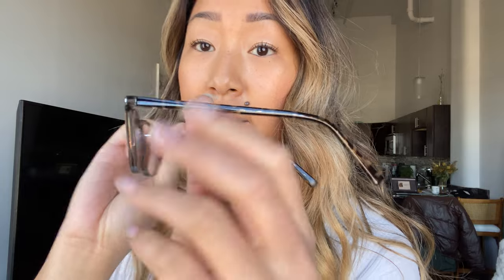Frame number three is the Dumont Rectangle — a translucent frame with beautiful detailing on the arms. It starts from $5.95 with a lens width of 51 millimeters. It does not have spring hinges or nose pads and is available in gray, which is the color you see here, orange, and plaid. It also comes as sunglasses — a great everyday pair, very easy and versatile to wear with anything.